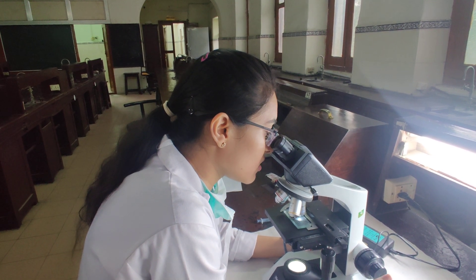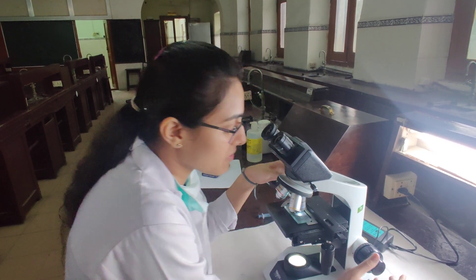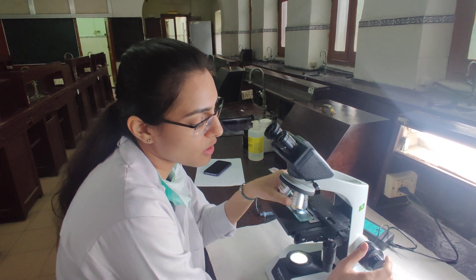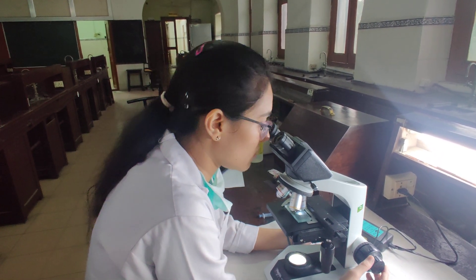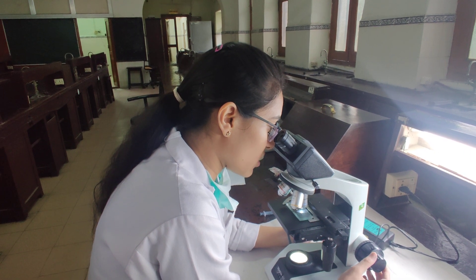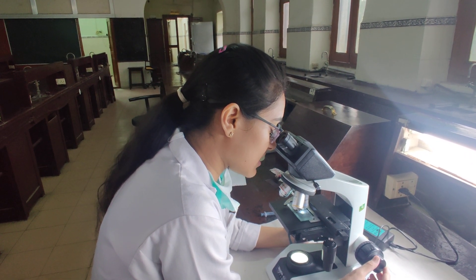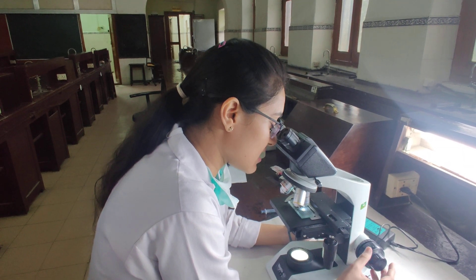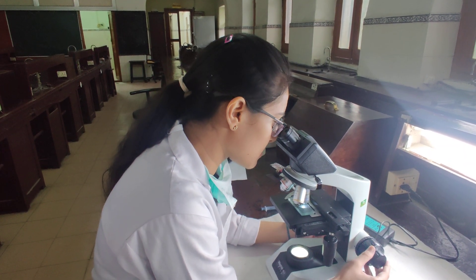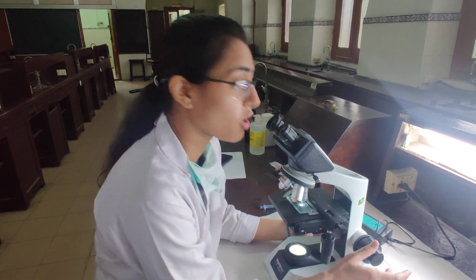After focusing the Neubauer's chamber under the microscope, specifically under high power which is 45x, the same as the RBC count, we are trying to focus the platelets in the center. What we can see is that there are small round bodies which are much smaller in size than the RBCs.